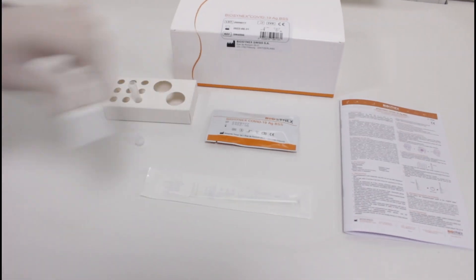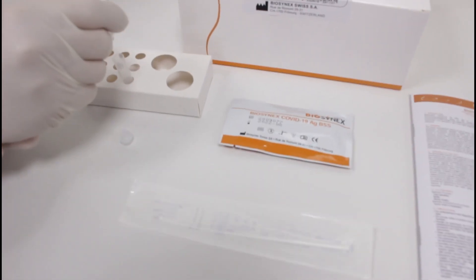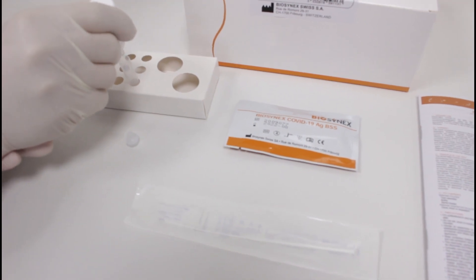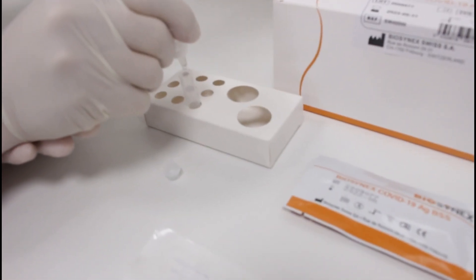Place the extraction tube in the workstation and take the extraction buffer. Place 10 drops of the extraction buffer into the extraction tube.